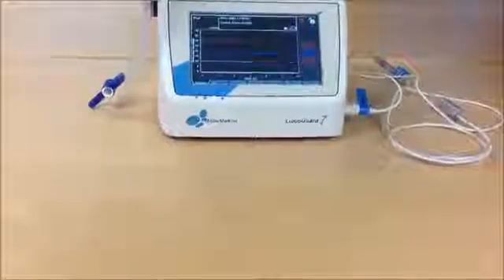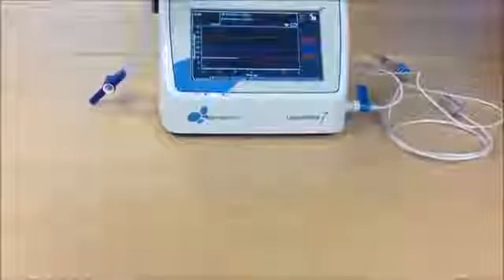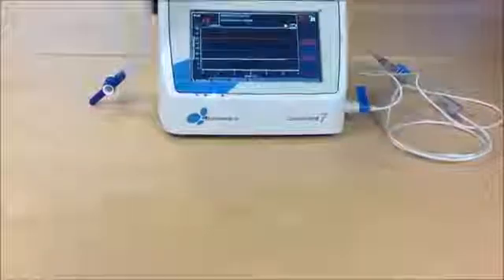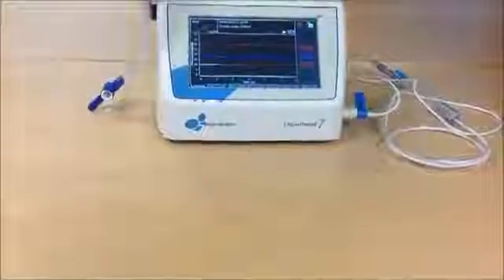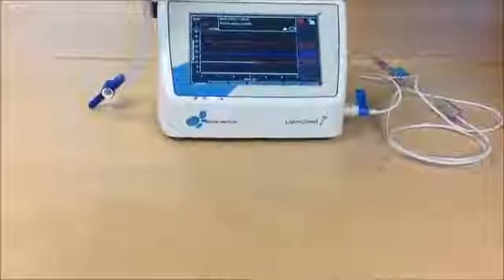Means we have three alarms that tell us something is wrong: low pressure alarm, no pulsation alarm, low flow alarm in case of slit ventricles.